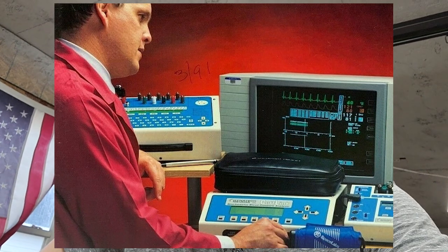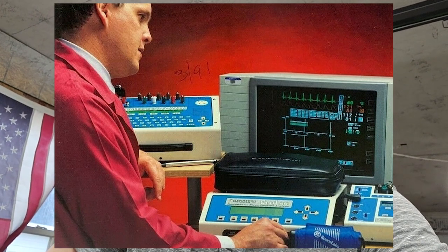I got each of these for around $200 with shipping — two different electrical safety analyzers. This one I'm going to showcase today is the 232D, made by D&I Nevada. They made some really solid products, and it's almost a shame that their products have gone away.